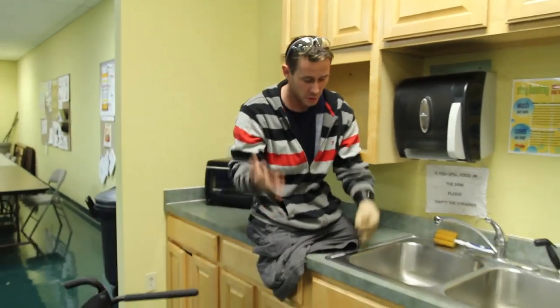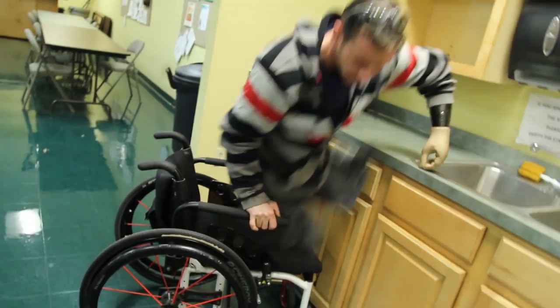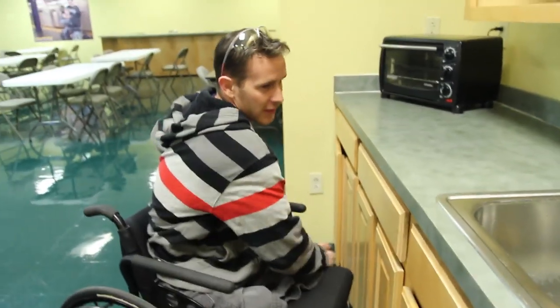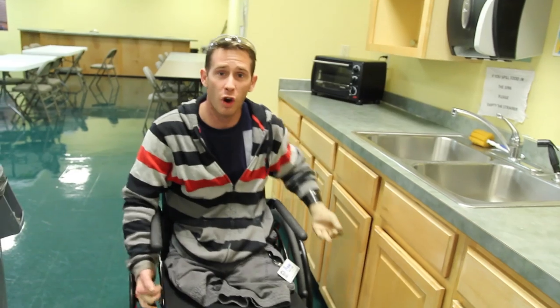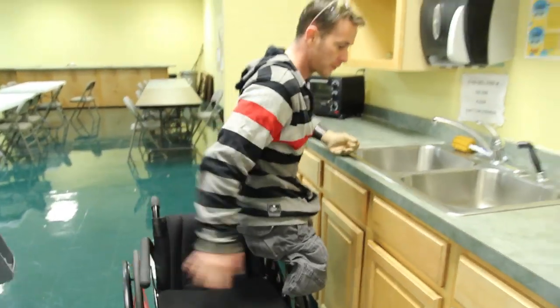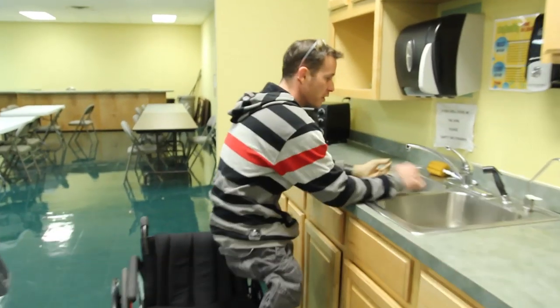To get back down, put your hands in the same spot again — left hand here, right hand here — and you just pop down. Another way you could do the dishes is you could sit in front of it and sit on your armrest, and use your forearms on the counters to keep your balance while you're doing everything.